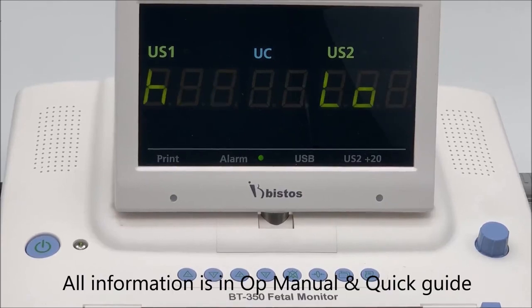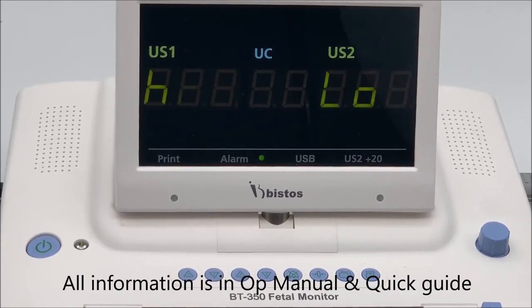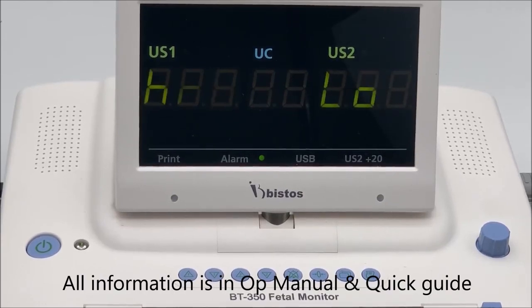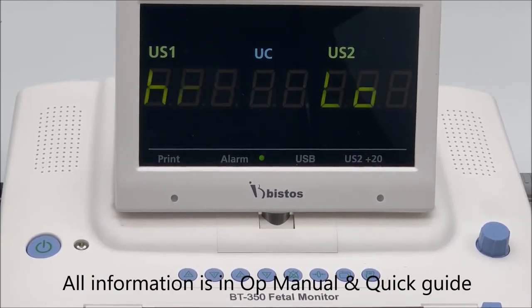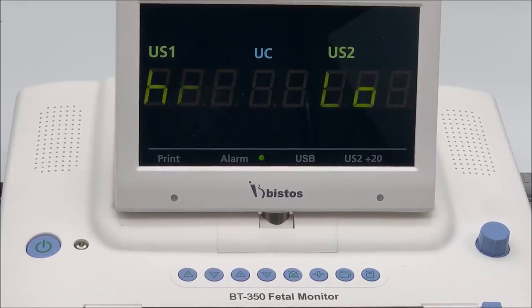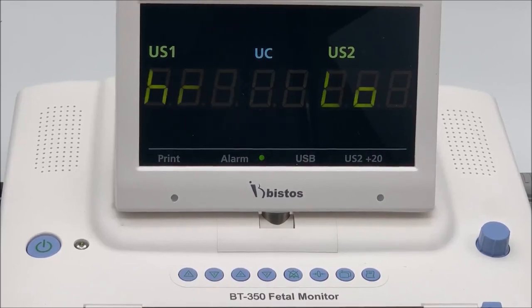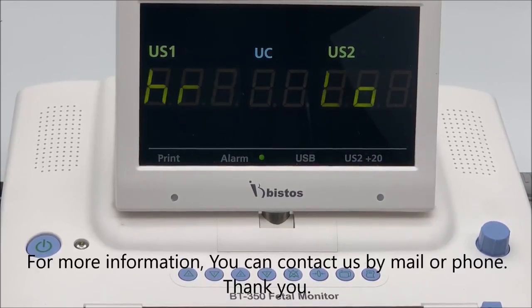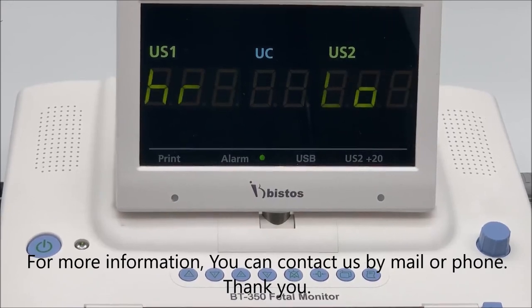All information explained is included in the operation manual and quick guide. For more information, you can contact us by mail or phone. Thank you.